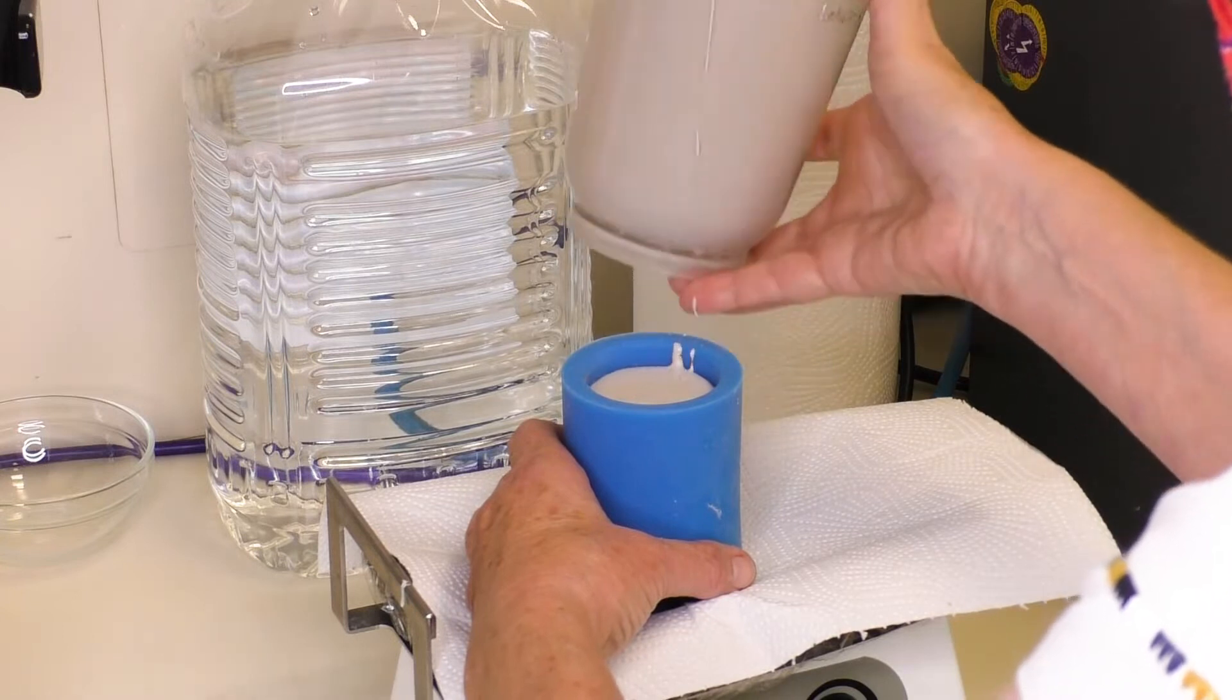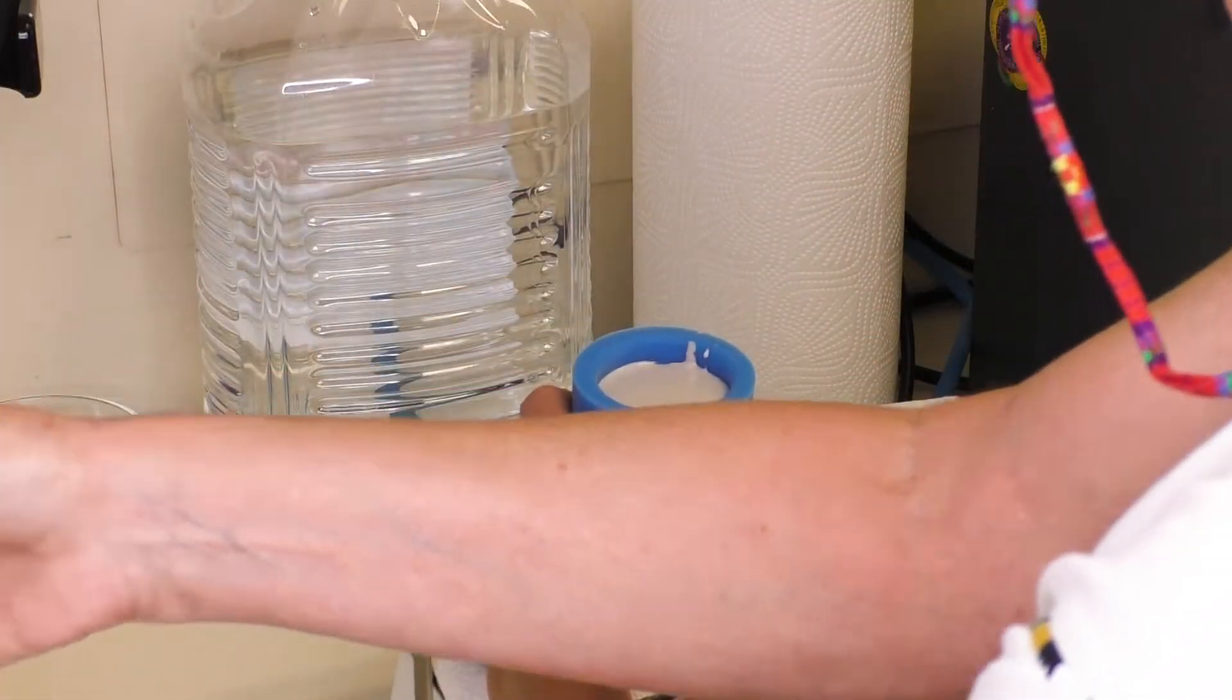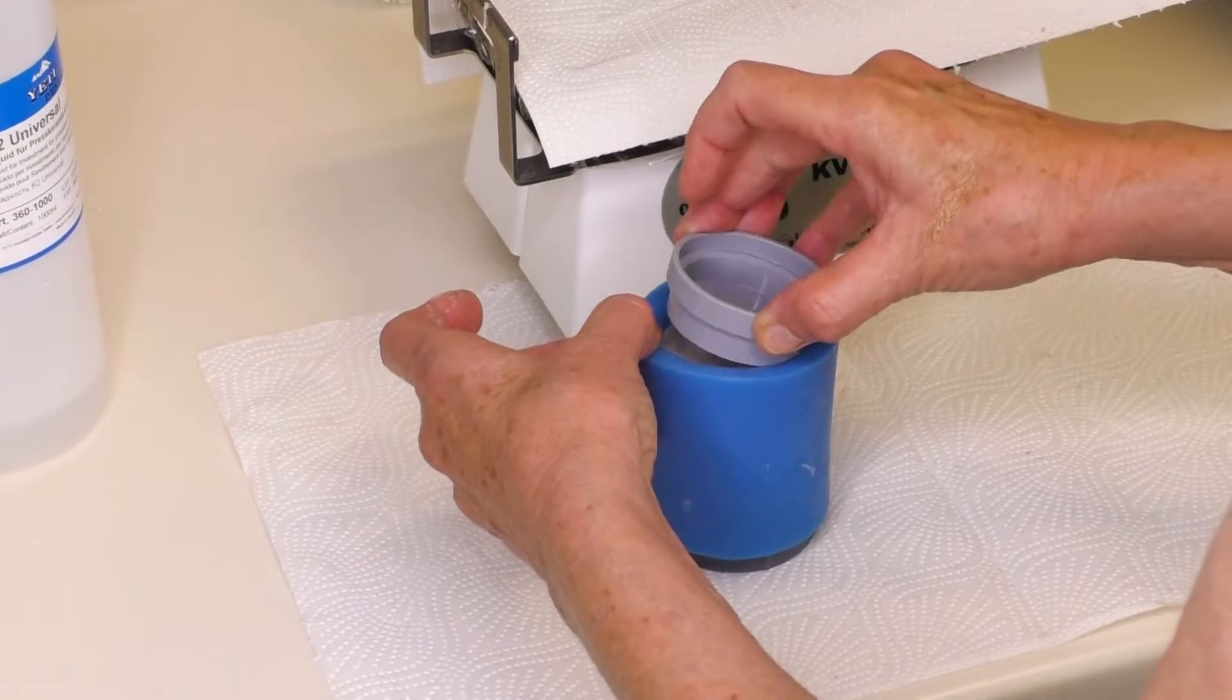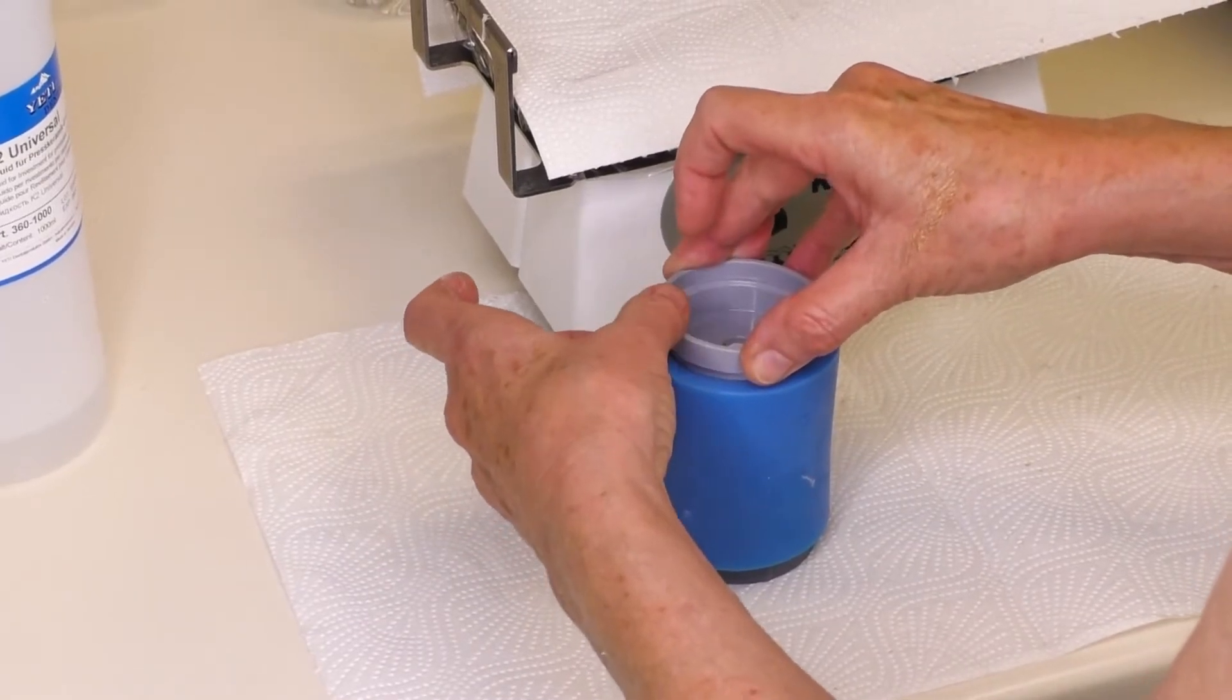Fill the silicon cylinder to the upper ring inside before you close it with the mold gauge. Don't move the cylinder during the setting time.